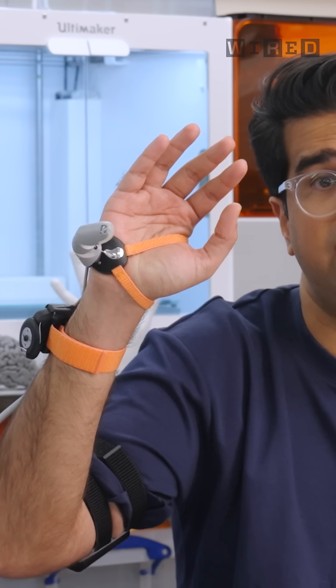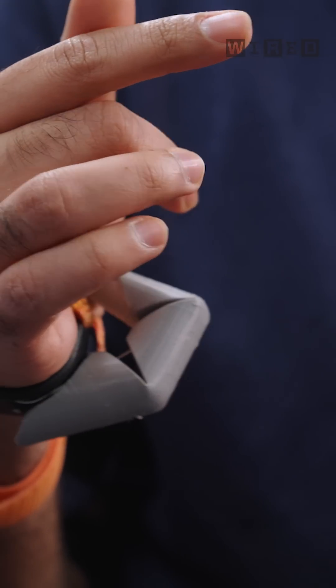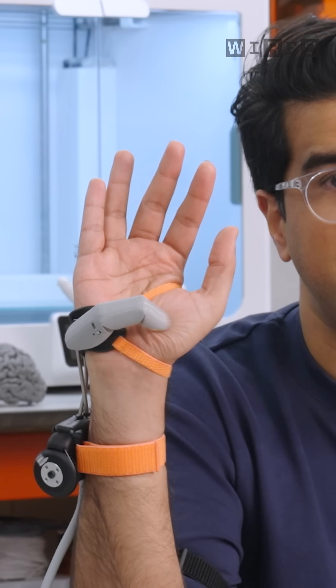That is pretty quick, and you can do a slower, more delicate movement. Actually trying to move them in tandem and getting the pressure right — I think that's going to be a real challenge of learning how to use this. On the left foot I've actually got quite a good level of control over the pressure. It's really powerful. You can see how much pressure it's putting on the palm of my hand.